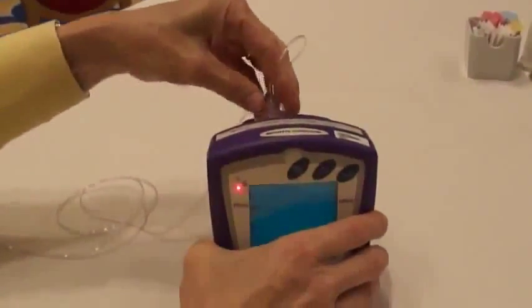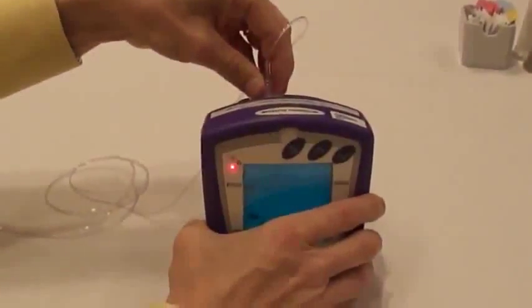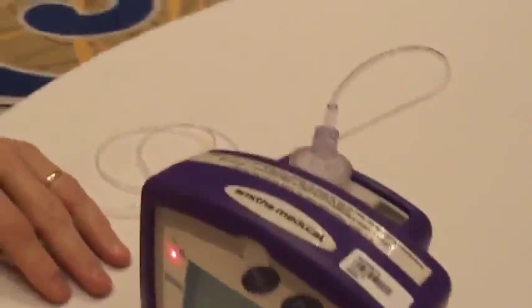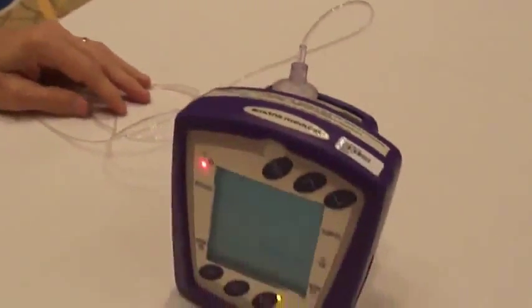The gas manifold, we suggest that it be changed every case. However, it depends on whatever your policy is for the particular physician's office. Naturally, the nasal cannulas are a single patient use.